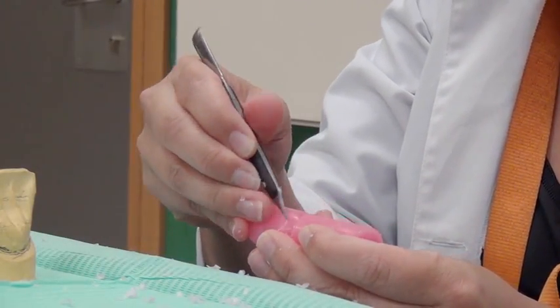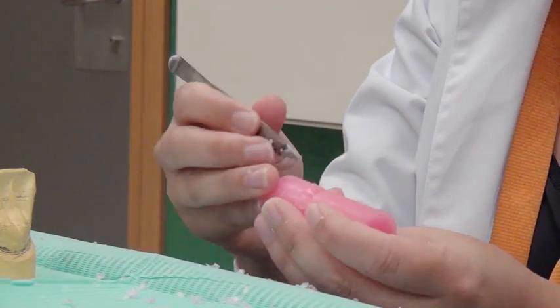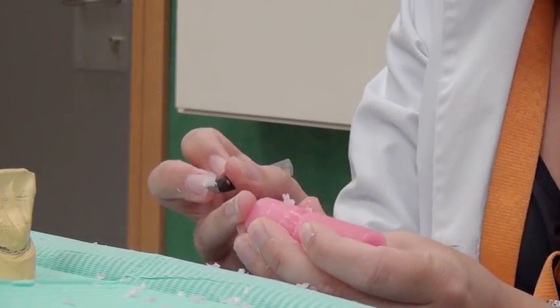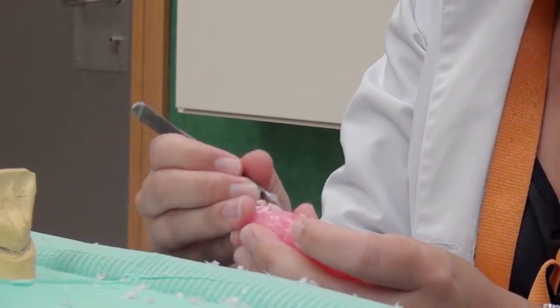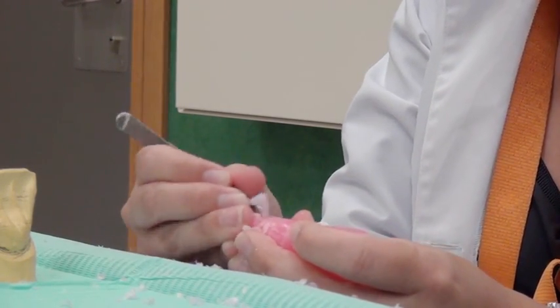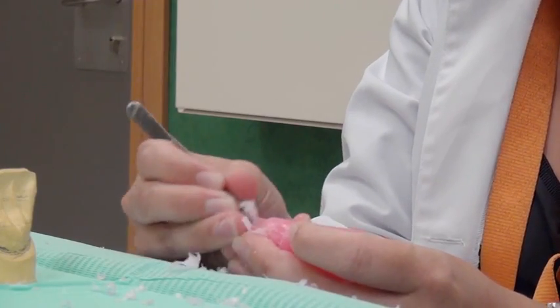On the palatal surface, the contour of the cingulum is lightly traced in the middle of the middle third. Wax will be removed from this line towards the incisal edge, creating a whistle-like shape.